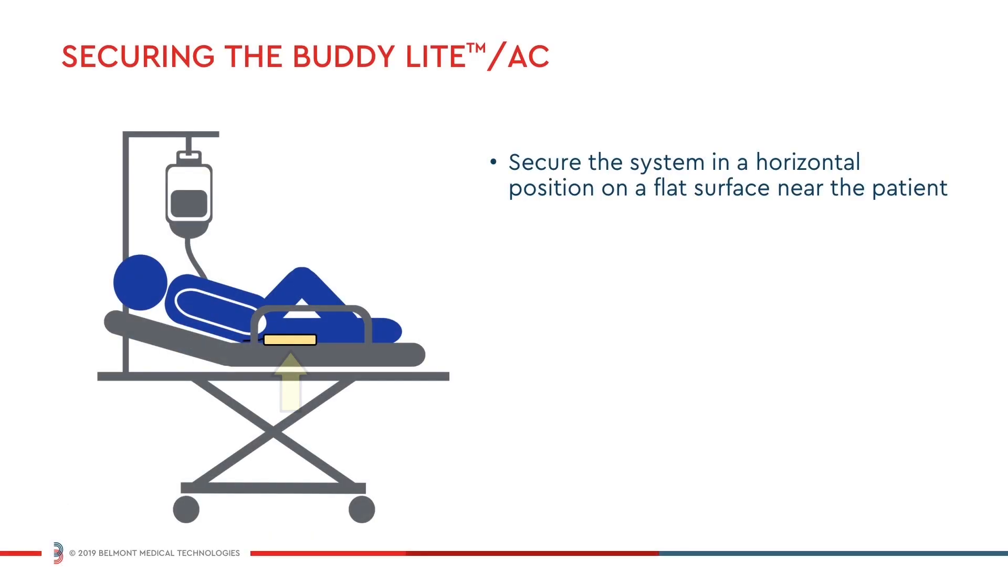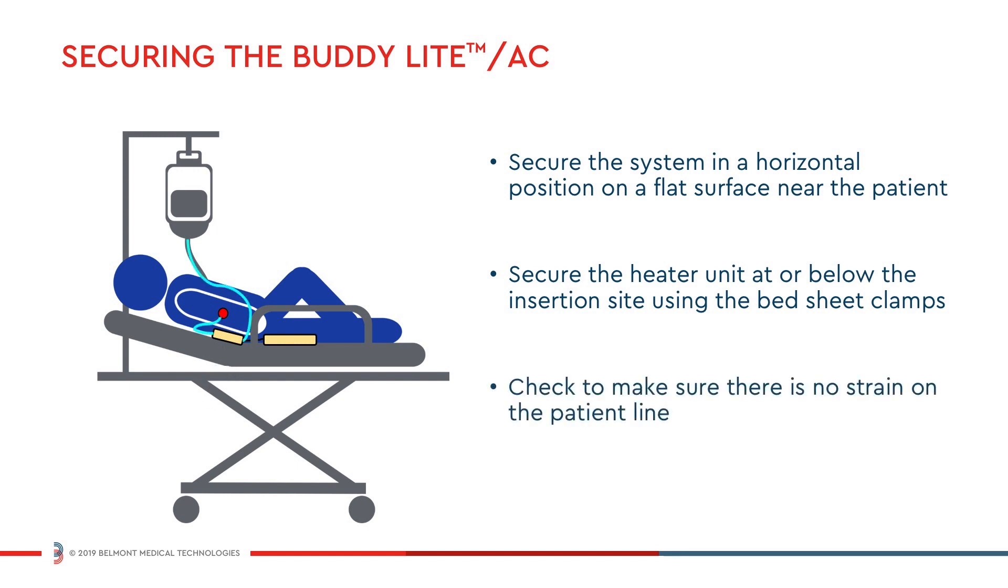Secure the system in a horizontal position on a flat surface near the patient, and then secure the heater unit at or below the level of the insertion site using the bedsheet clamp. Check to make sure that there is no strain on the patient line.